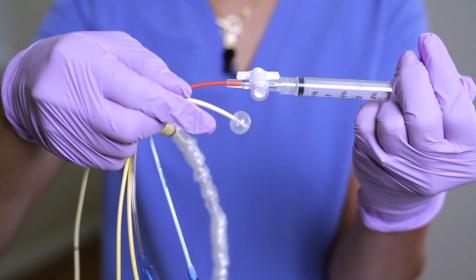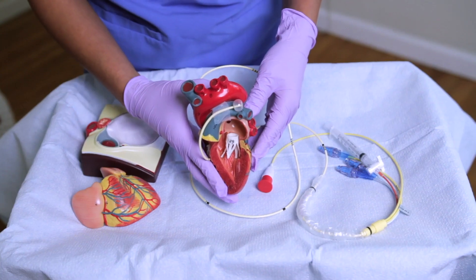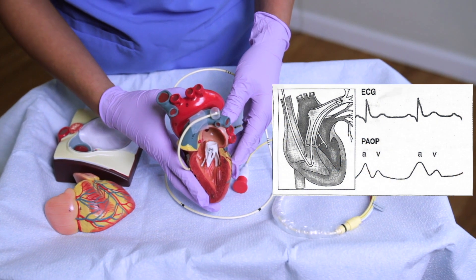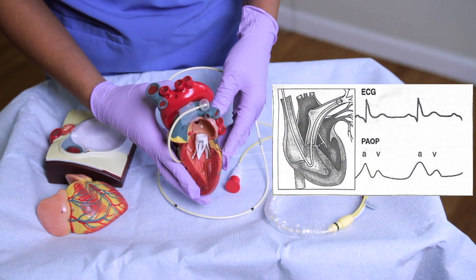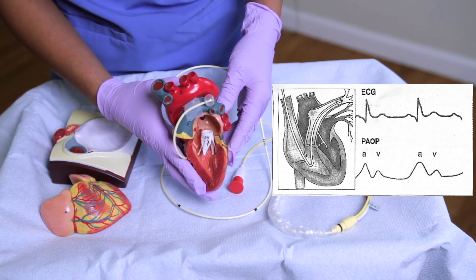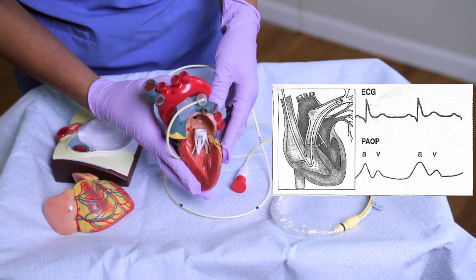As the balloon for the PA cath is inflated, it can't pass any further. The monitor will show this PAOP, like a wedge pressure waveform, with two small upright waves. The A wave indicates the left ventricular end-diastolic pressure and the V wave indicates left atrial filling.